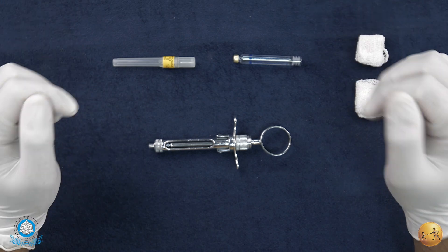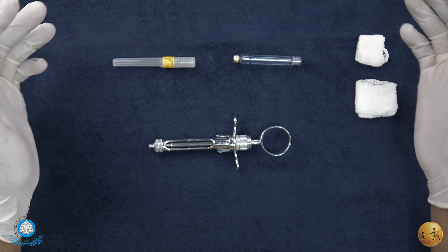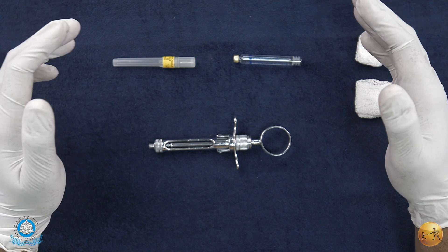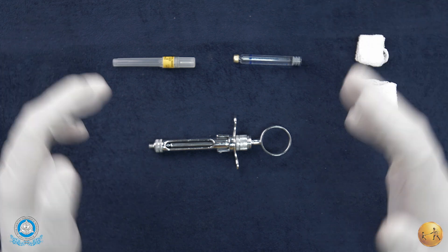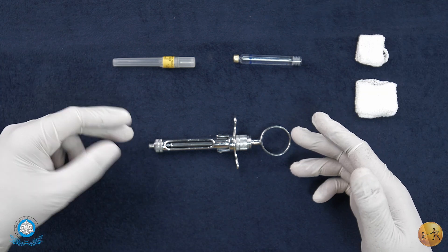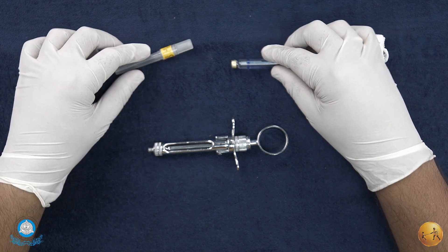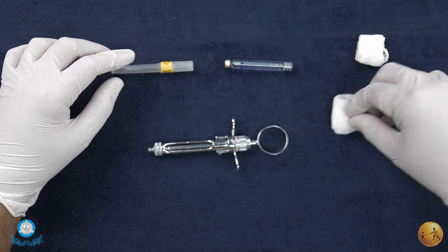Today we'll be talking about the armamentarium for local anesthesia injection. In a previous video we saw the armamentarium of a disposable syringe. Today we'll be talking about the actual syringe cartridge system which is generally recommended.